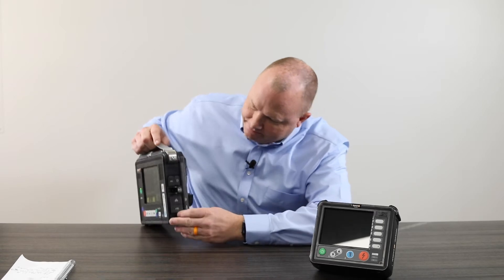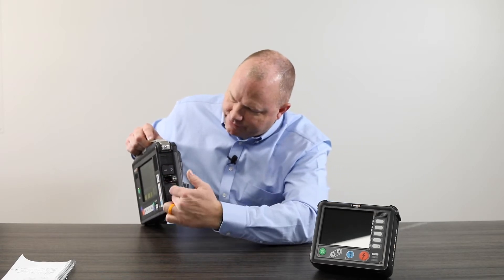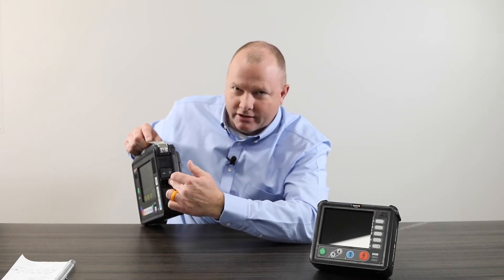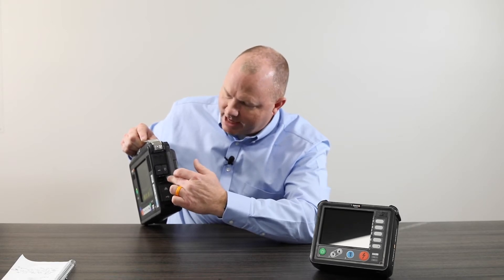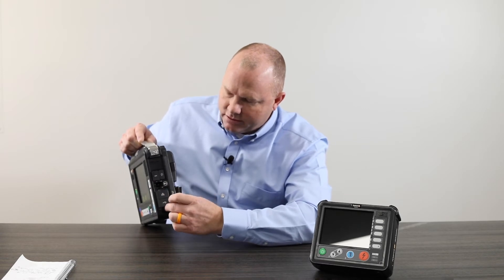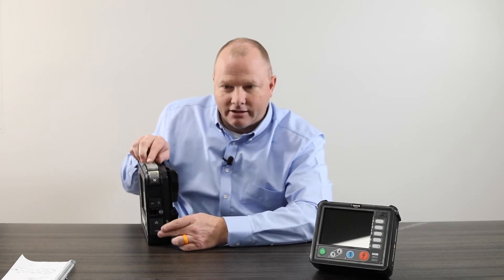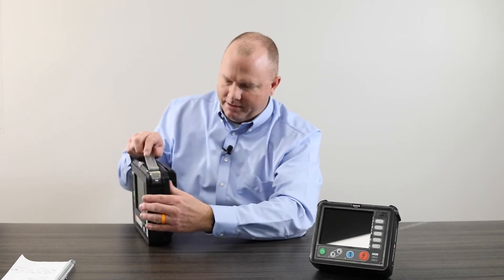On this side, there are just a few different ports. There is a switch here that can kill all communication if you're in a tactical environment. There are USB ports and data ports. This unit has the capability to add a plug-and-play video laryngoscope and plug-and-play ultrasound via the USB ports.